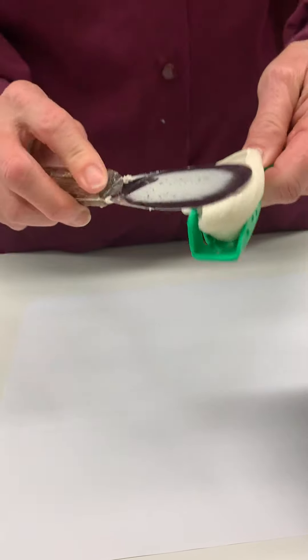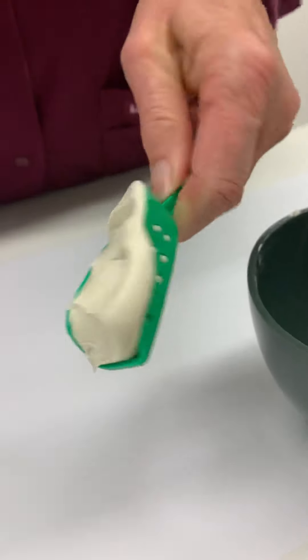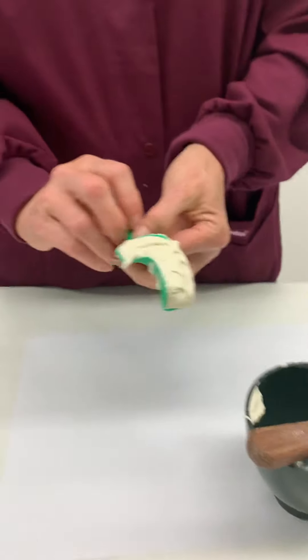I'm smashing the material into the tray — you should be able to see it. Always use a downward motion. Clear the spatula for easy cleaning.